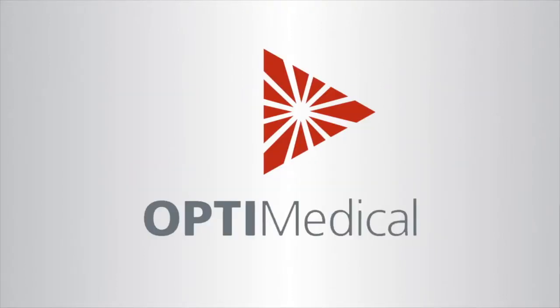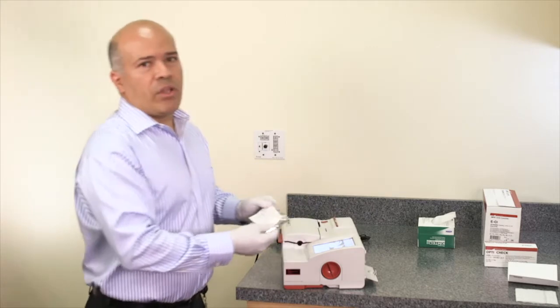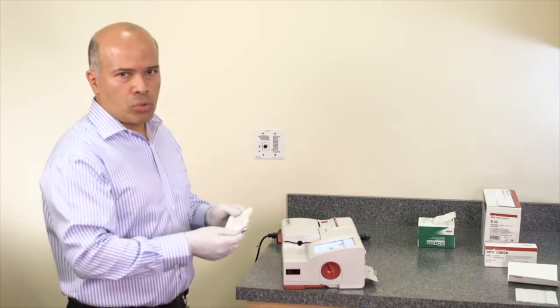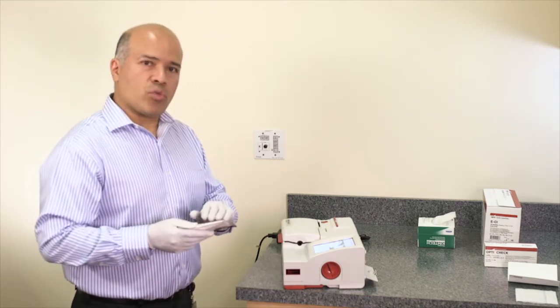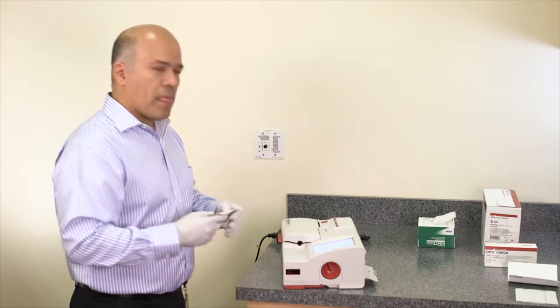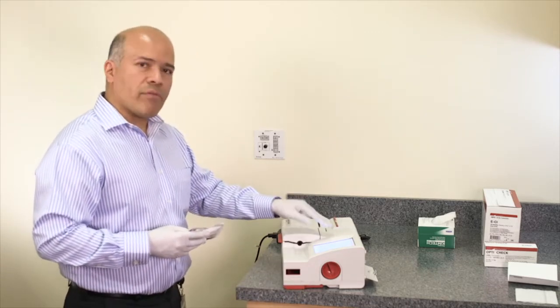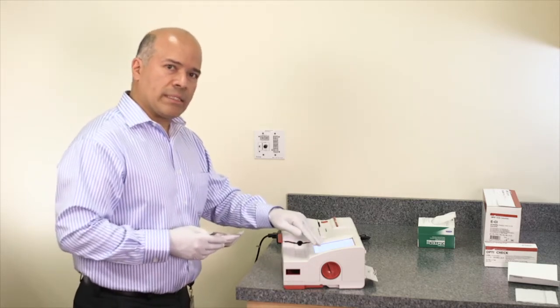The OptiCCA-TS2 analyzer comes with two cassettes: the multi-level SRC and the total hemoglobin calibrator cassettes, located in the back compartment. The multi-level SRC is an electronic test. To run the multi-level SRC, the barcode has to be scanned on the barcode reader. Then the analyzer prompts the levels to be done, and the user selects the levels needed.